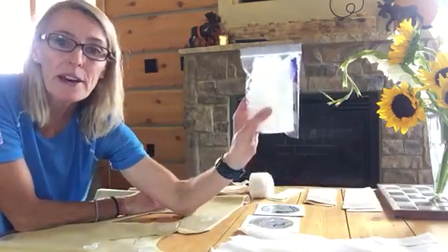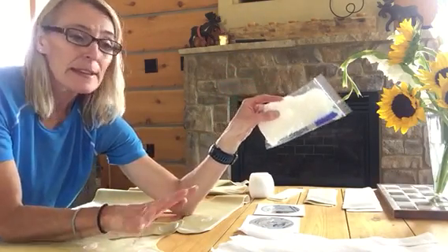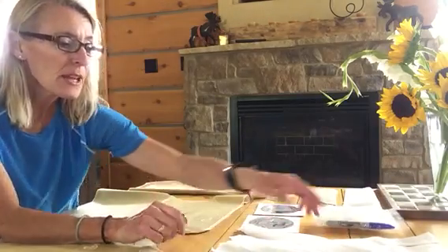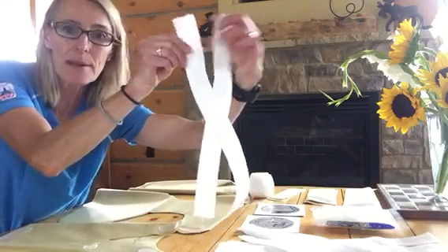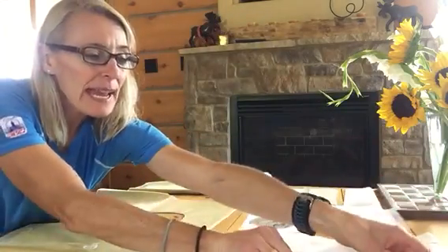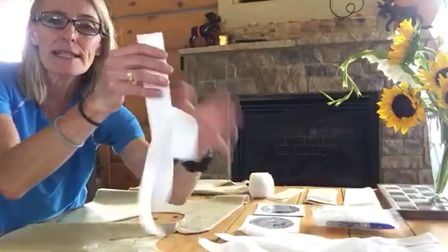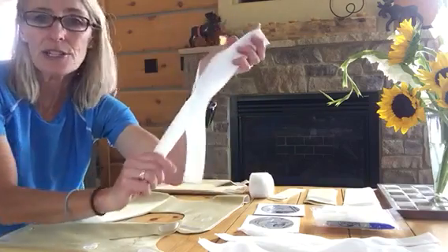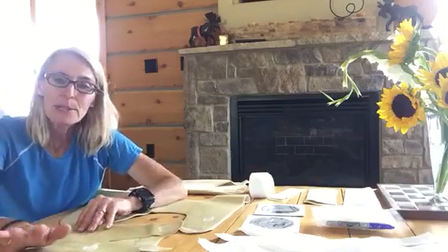You have a whole bag of extra tabs — tabs you will need for strapping — in the surplus that comes with the system. You have four larger size cross straps, eight pre-cut straight straps of Togrite, and a slightly smaller size cut of Togrite cross straps, most likely for the preschool size Theratog.